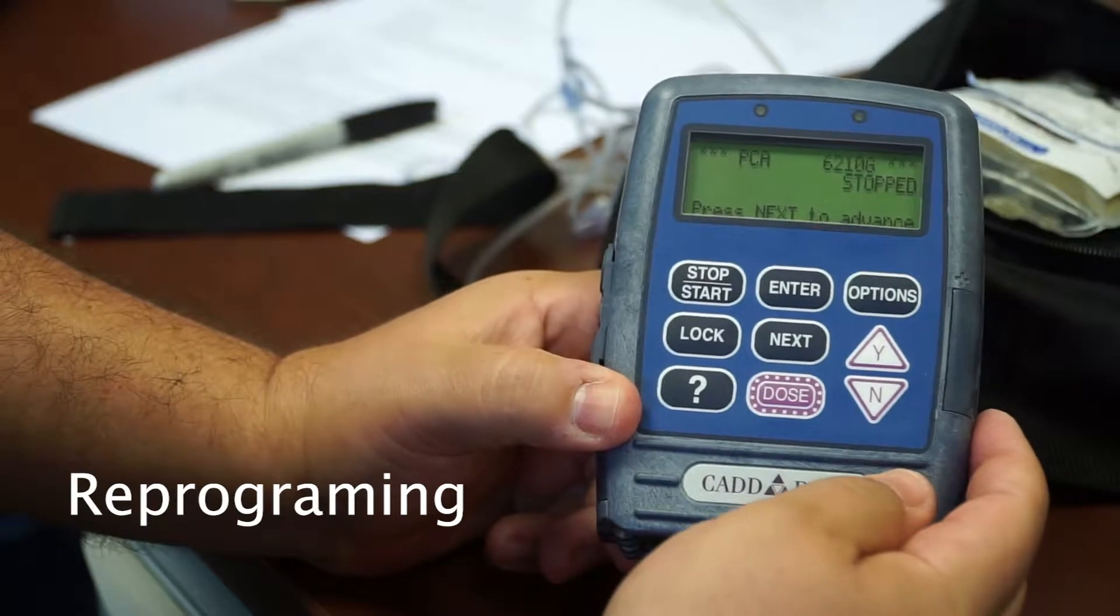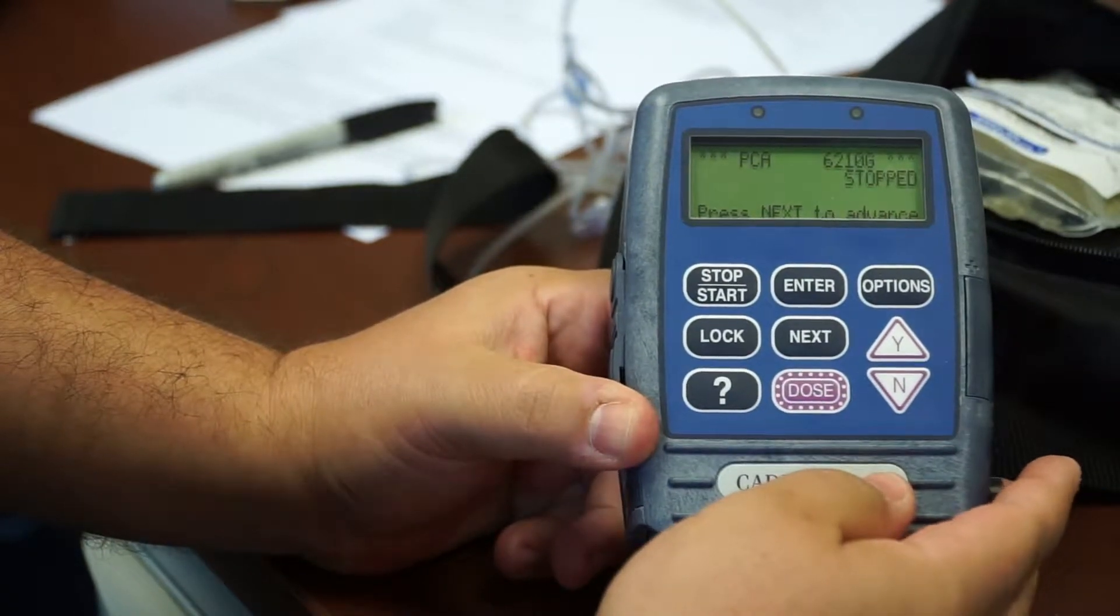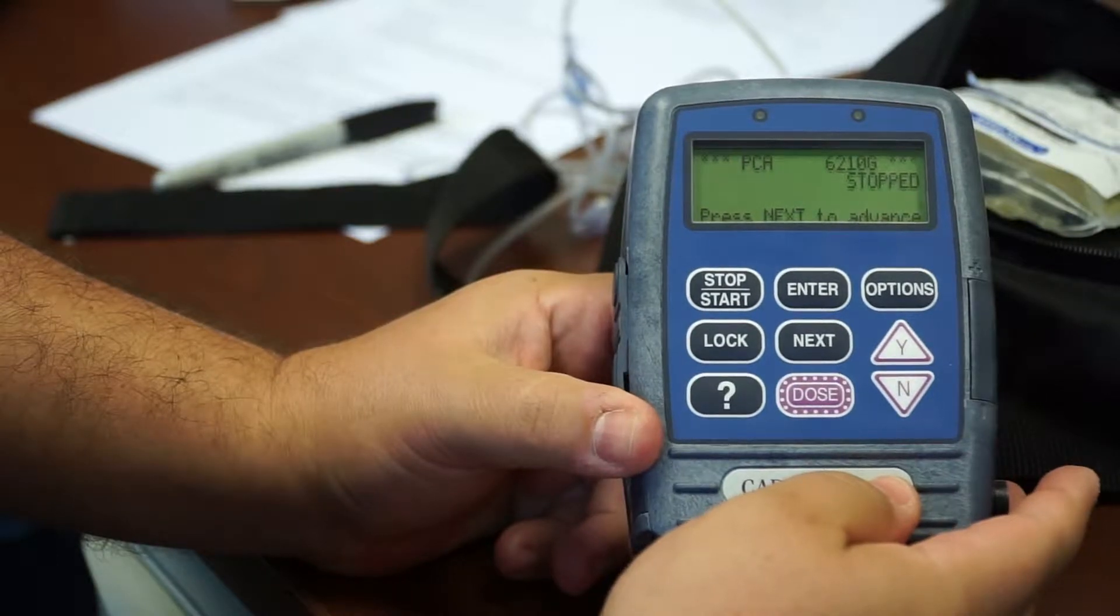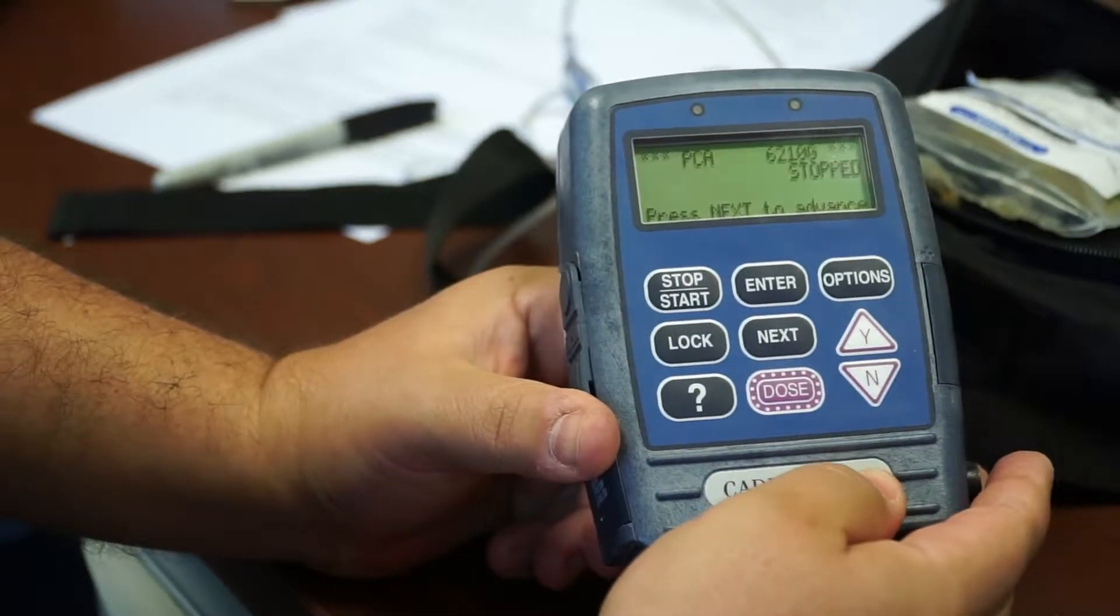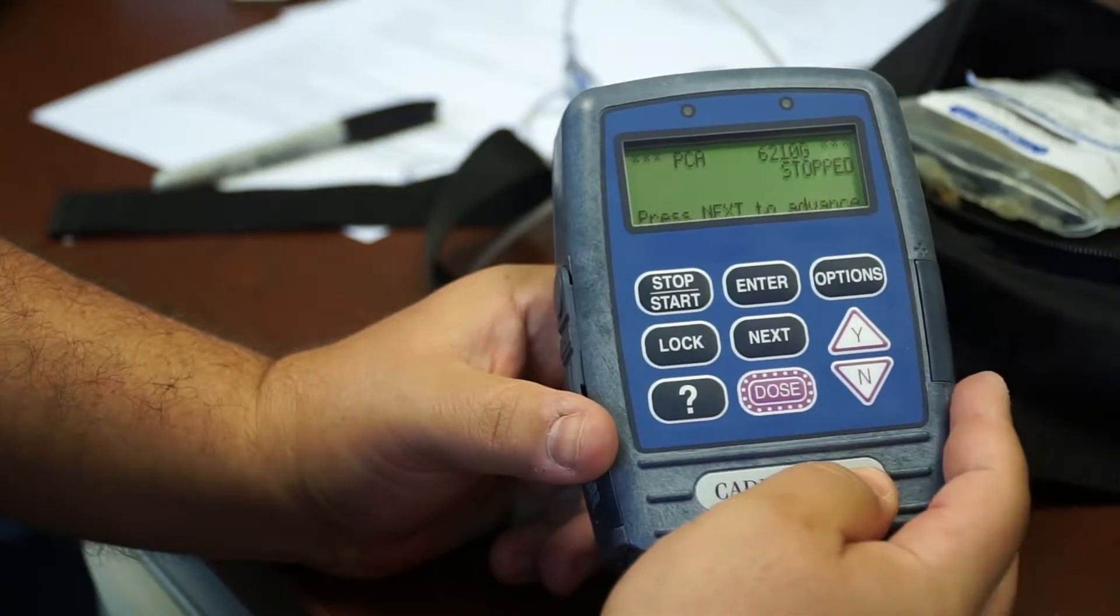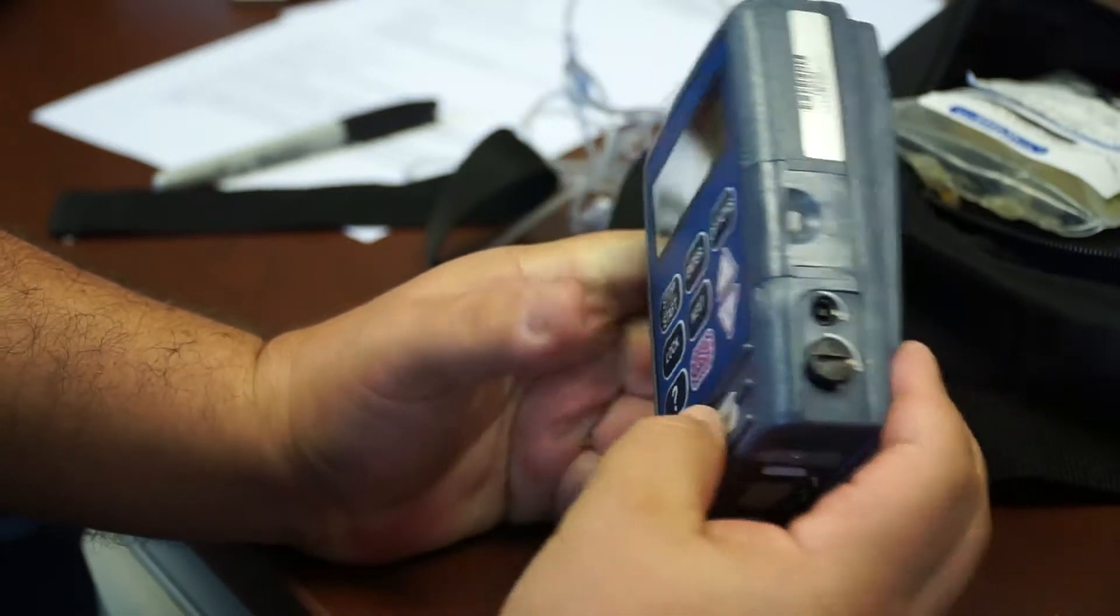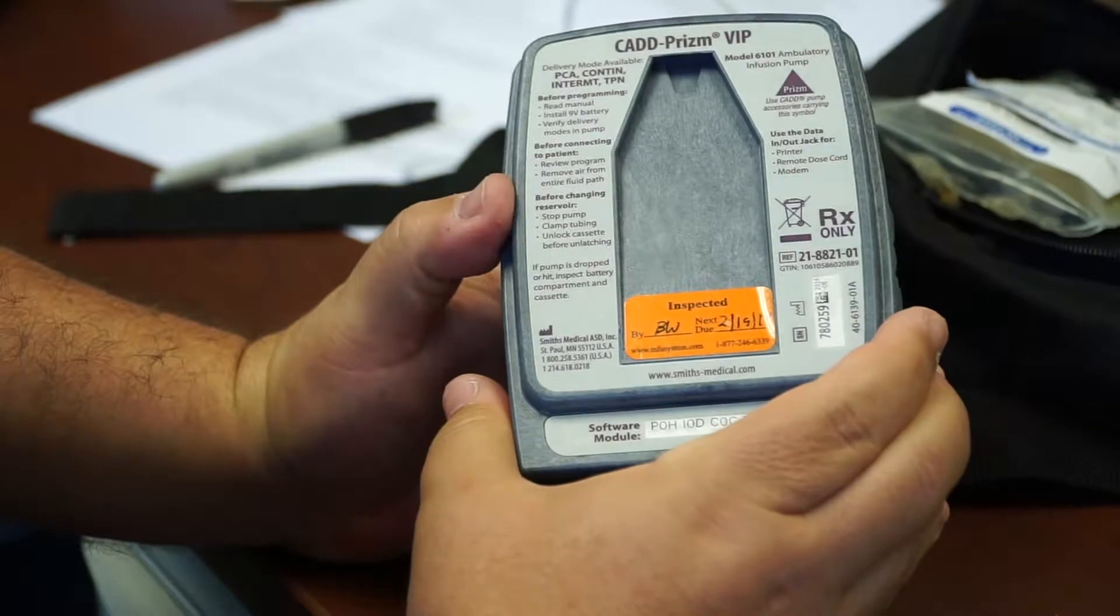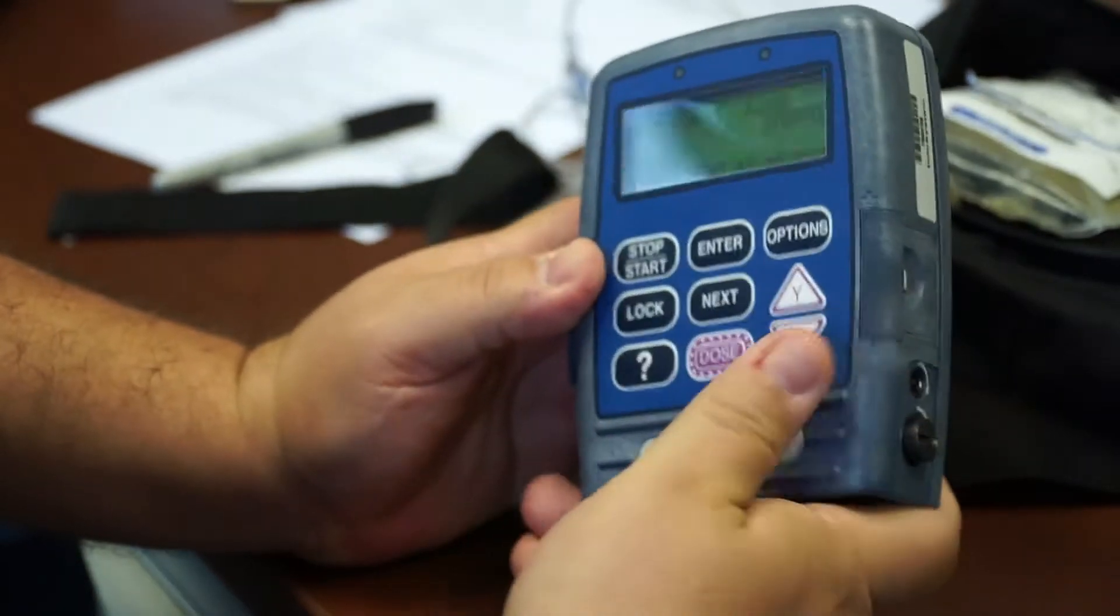In order to reprogram this, CADD pumps typically are sent in with the correct programming settings, but sometimes they are not, especially if you have to change your CADD pump, if you have a backup, or if they need to change it because the calibration is out of date. Like this one would be typically out of date, but this is just a demo machine.